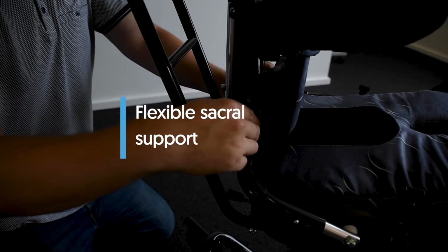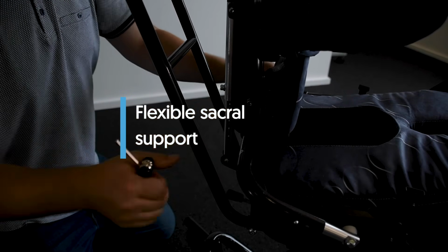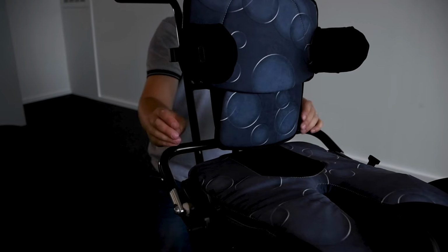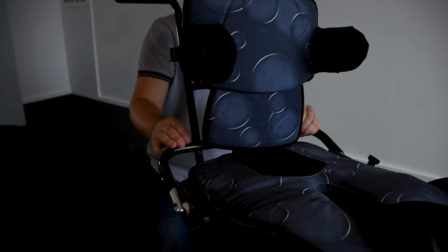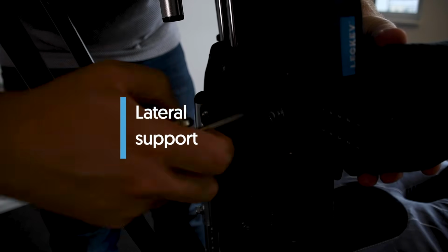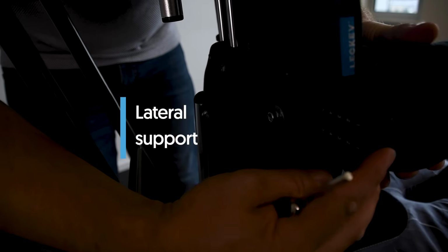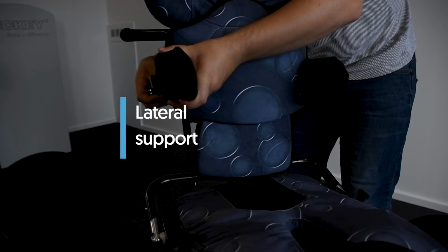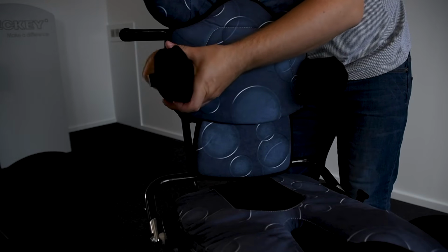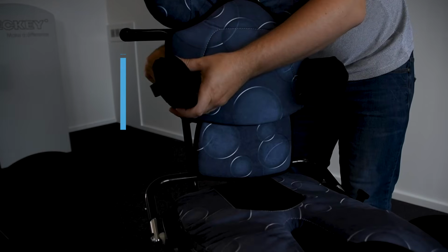Flexible sacral support. To adjust the height, depth and angle, loosen the bolts on either side with the multi-tool provided. Adjust the support to the correct angle, then retighten the bolts. Lateral supports. Loosen the socket cap to adjust the width, height and angle of the lateral support and retighten when you have achieved the desired position. To move flip-away laterals, use the knob.